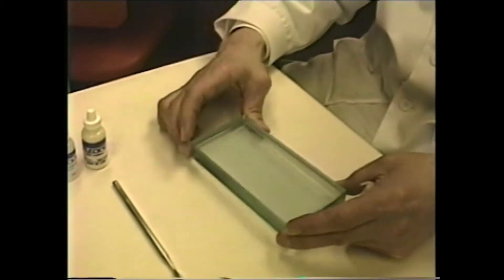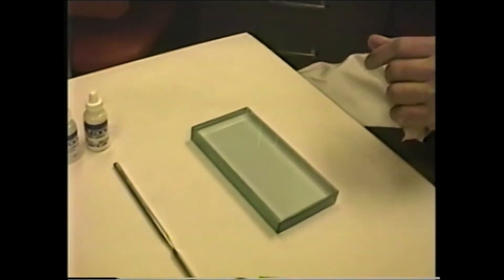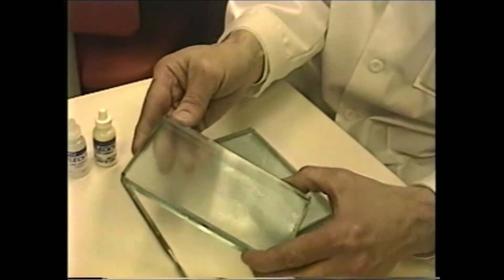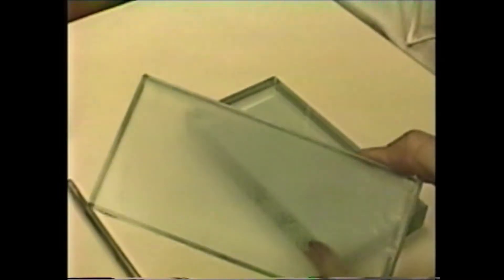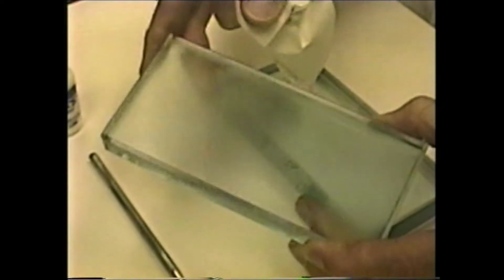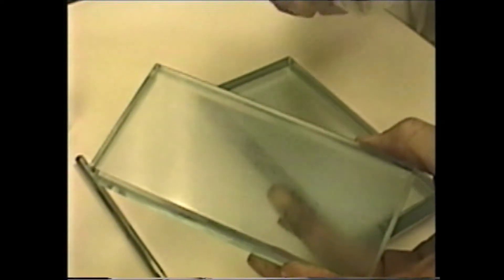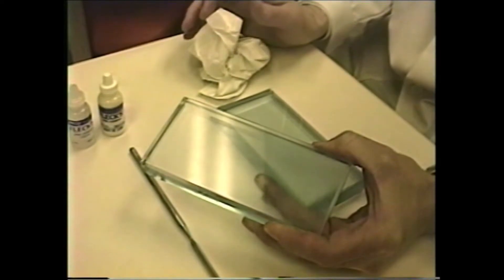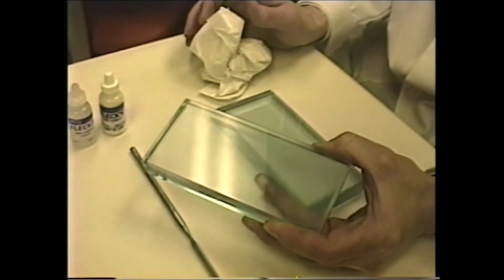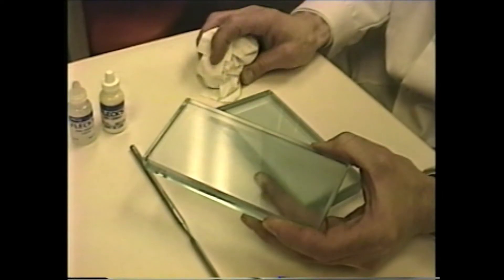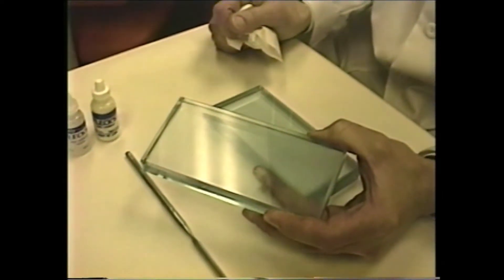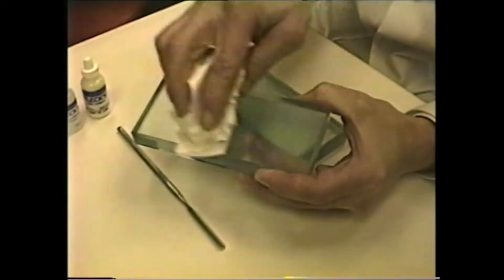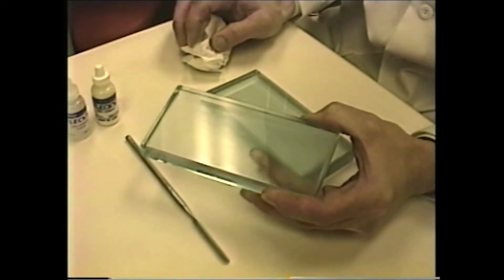One has to be careful, however. I placed one in the freezer to demonstrate. If it's too cold, you can see that moisture forms on the surface because of the dew point. You can see by wiping here that the moisture is removed. One has to wait until the glass slab arrives at a higher temperature so that moisture does not form, and then the mixing can begin. You can look up to see what the effect is of surface moisture on the setting of the zinc phosphate cement.